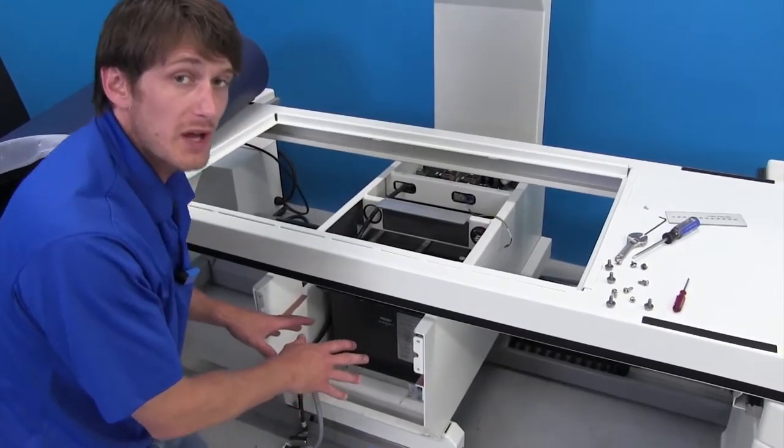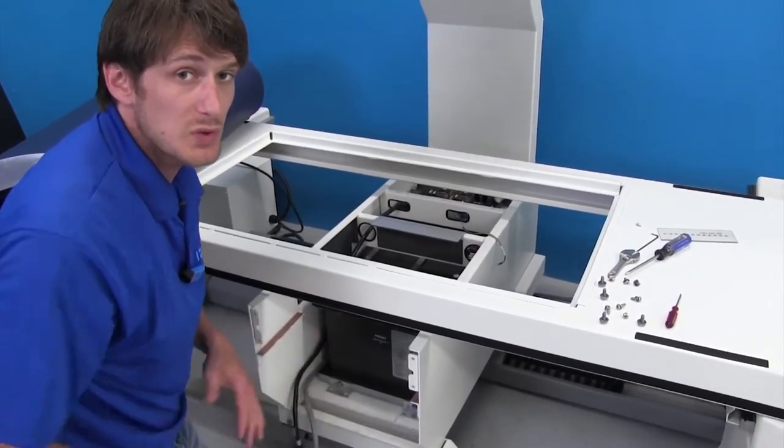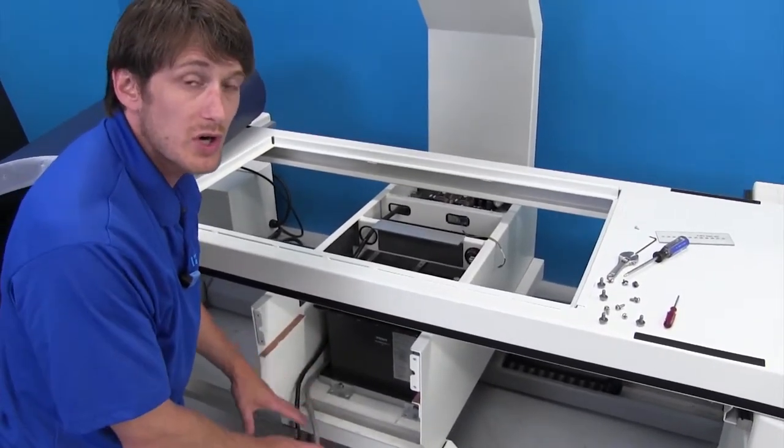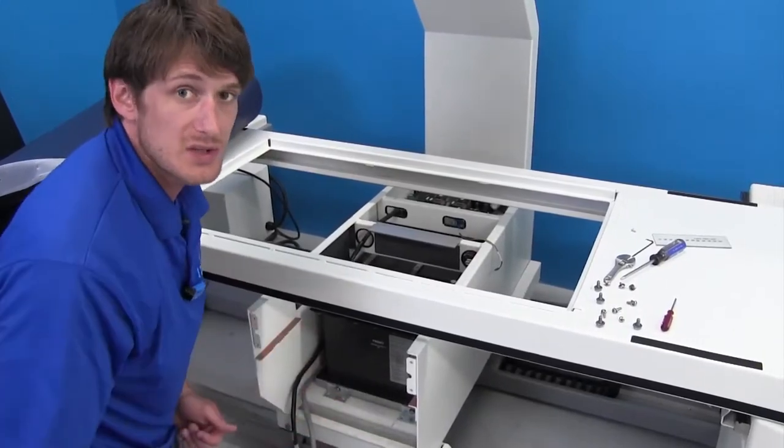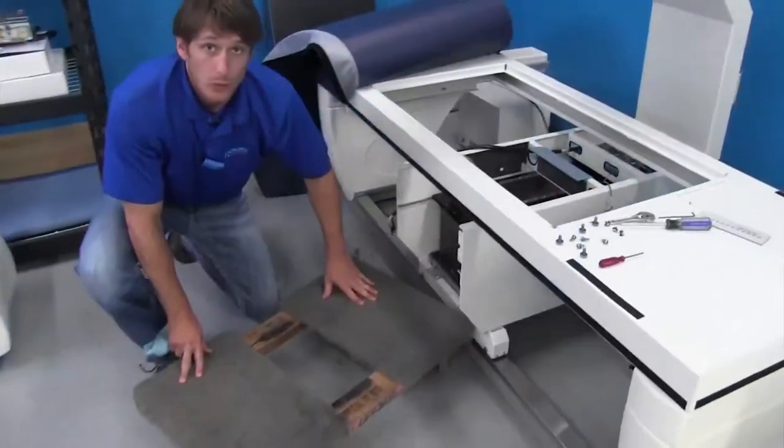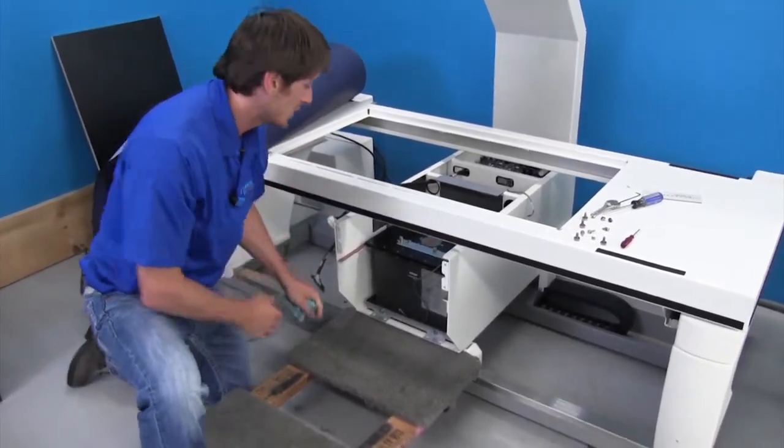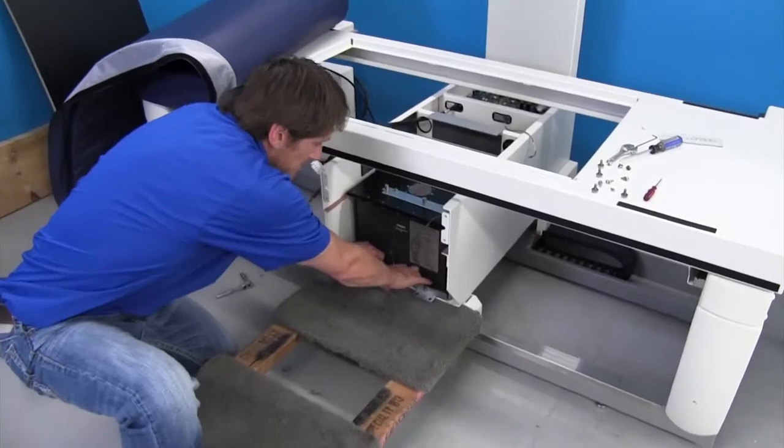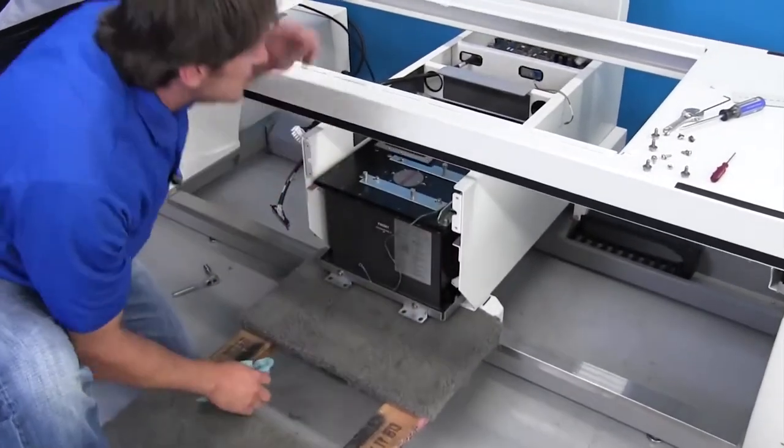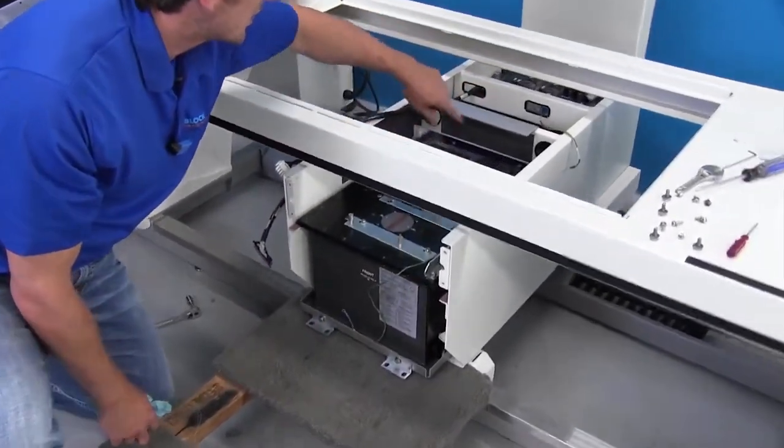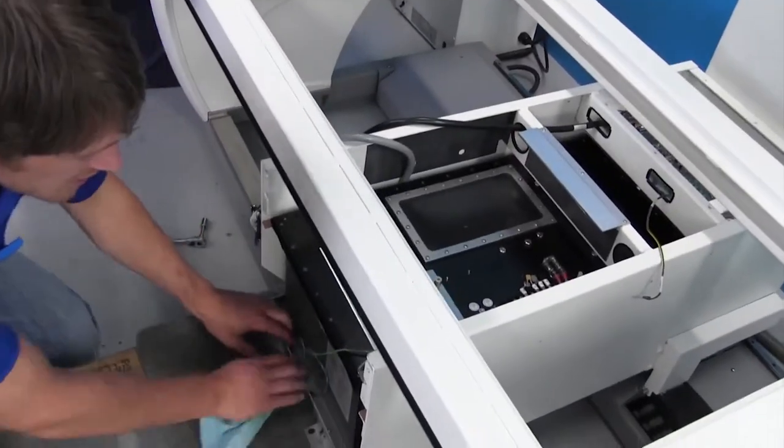And we need to be careful on this tank. They are very heavy. So what you'd want to do is slide in some sort of a cart or a stand to slide this right off onto very easily. When removing the tank, just slide your cart, four-wheel dolly if you will, and just slide the tank out very easily, keeping in mind that no connections are catching as you're sliding the tank out.